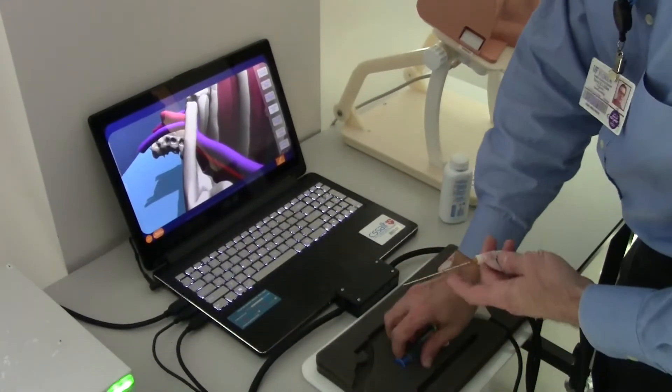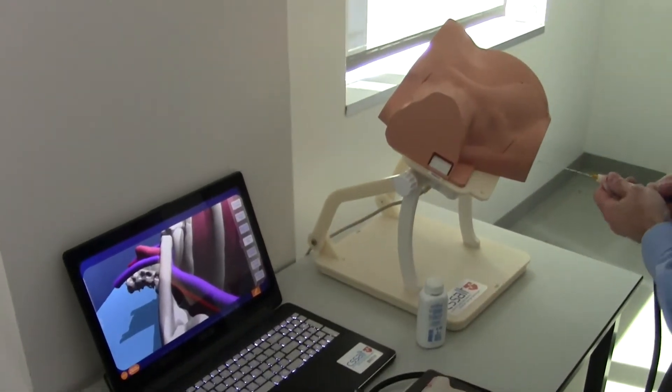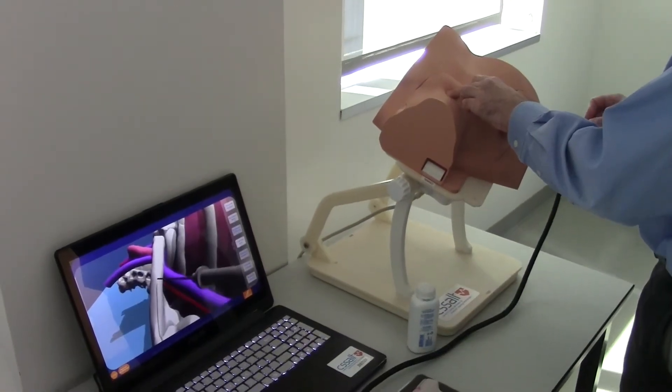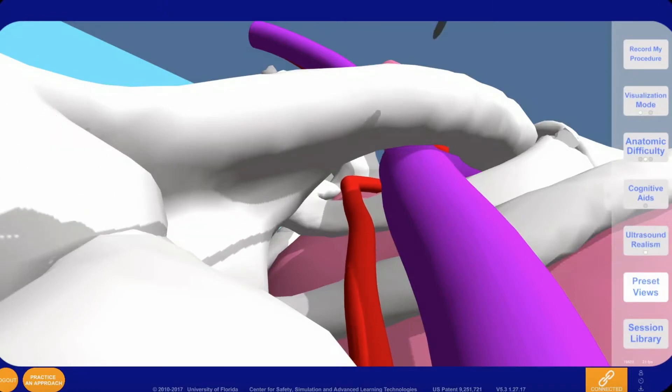The needle is tracked within the virtual model. While contact with the physical bone is made with the real needle, a tactile feedback system provides the feeling of perforating the walls of virtual vessels.